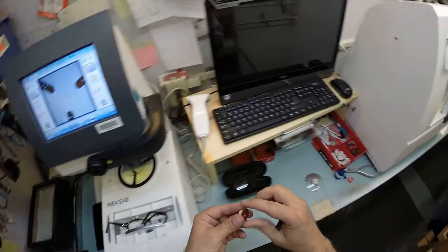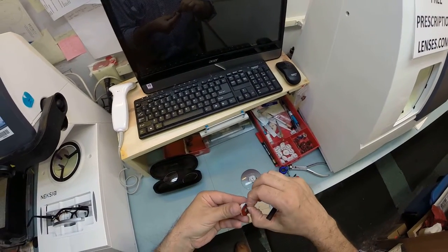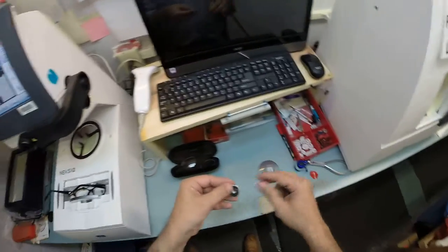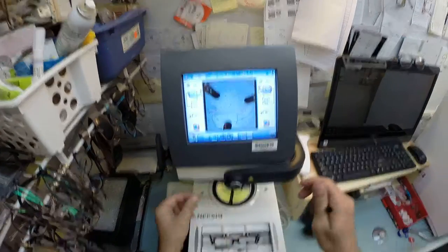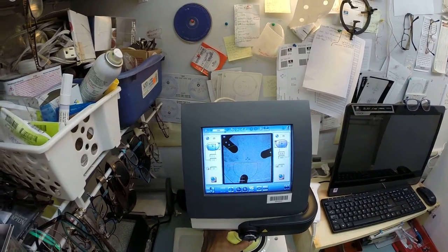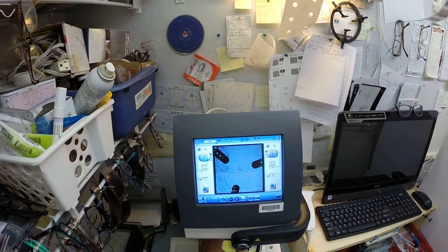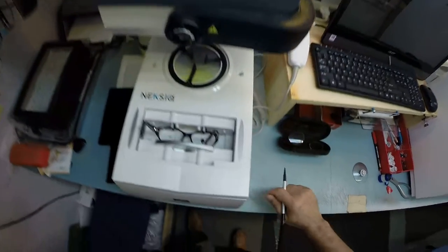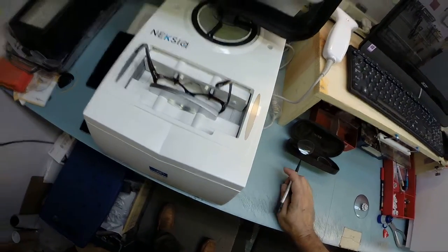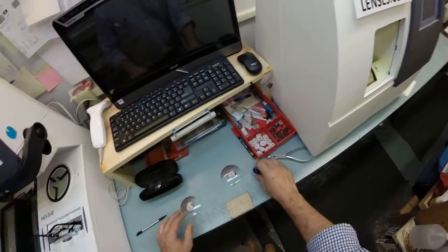Let's do the same thing now for your left lens. Pull the paper away—whoa, the whole thing wants to run away—there we go. Pull the paper away to make that side sticky. Get your left lens lined up there just perfectly. We're going to mimic the other lens and hit that button, and then the block is going to be applied to your left lens.